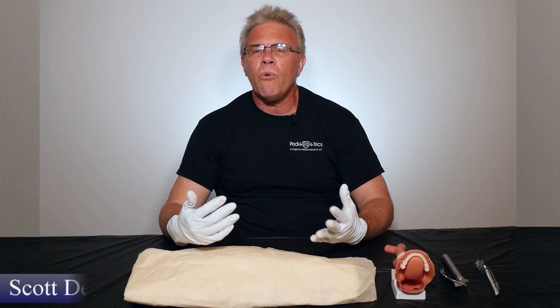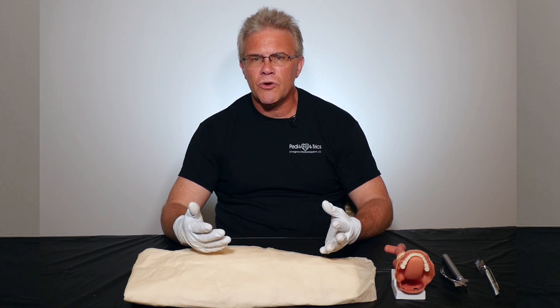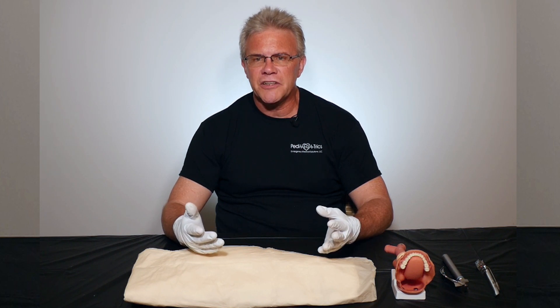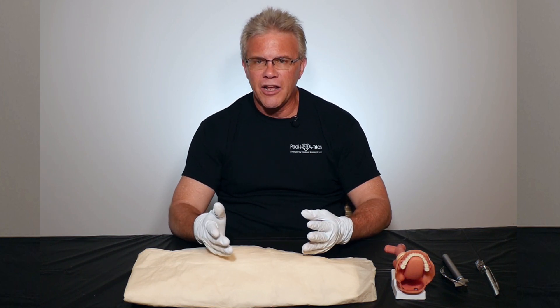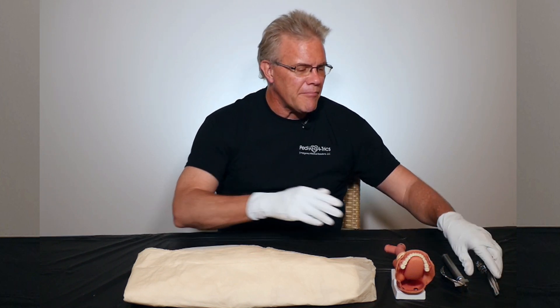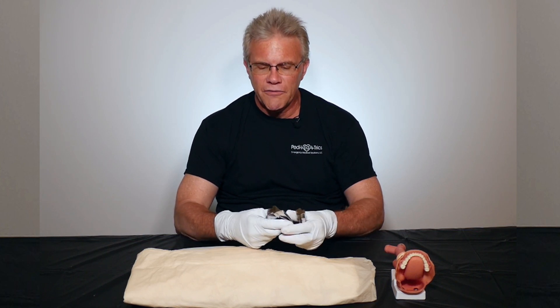Hey, it's Scott. What I want to quickly touch on in this Give Me Five involves something that many of us were taught in school but may or may not have physically made a whole lot of sense. That involves the whole idea of when you're intubating using a curved blade or a straight blade. Outside of anesthesia, where they have lots of different toys, for most of us we've got curved and straight.